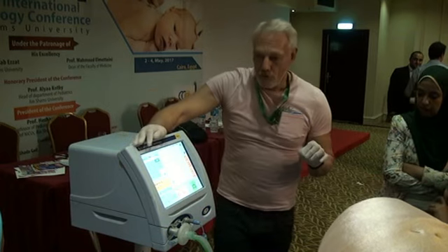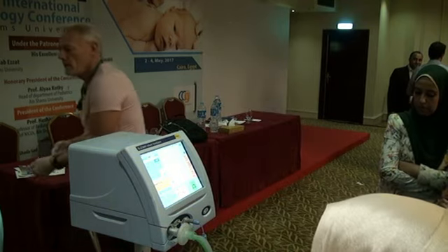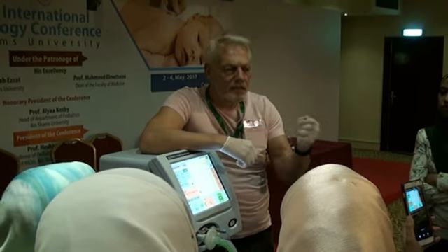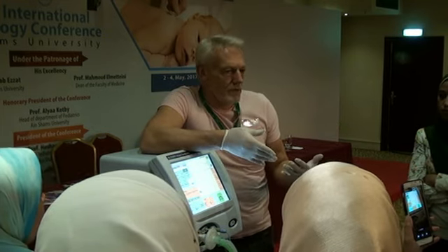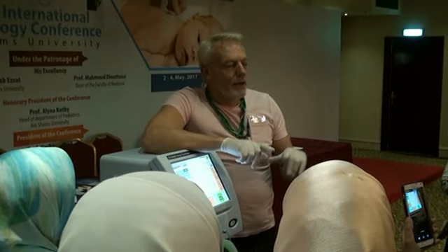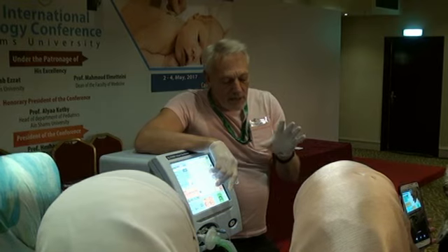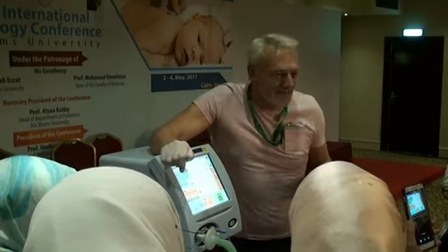How do you choose your frequencies? But ordinarily, once a frequency is set, it isn't something we're routinely changing, although it has an effect on CO2. We normally set a frequency and in general leave it. And there are theories, which I can't quite show you yet, about how that works and why we do that. But suffice it to say, let's choose 10 hertz and see what happens.